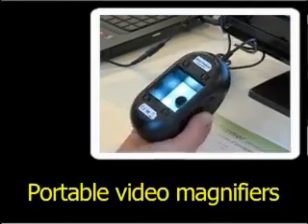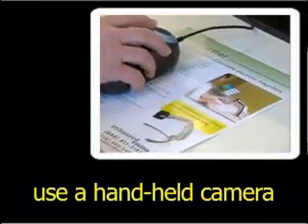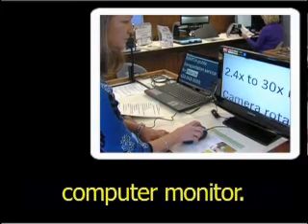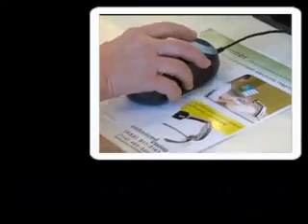Portable video magnifiers, such as the ones demonstrated in this section of the video, use a handheld camera that is connected to a display, such as a TV or computer monitor. The unit is similar to a mouse, a bit larger, but still fitting within the palm of the user's hand.